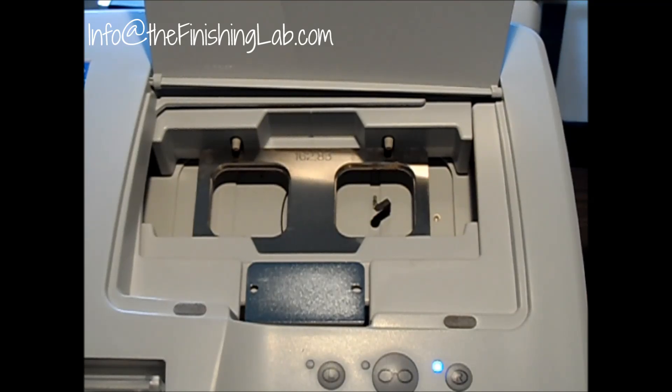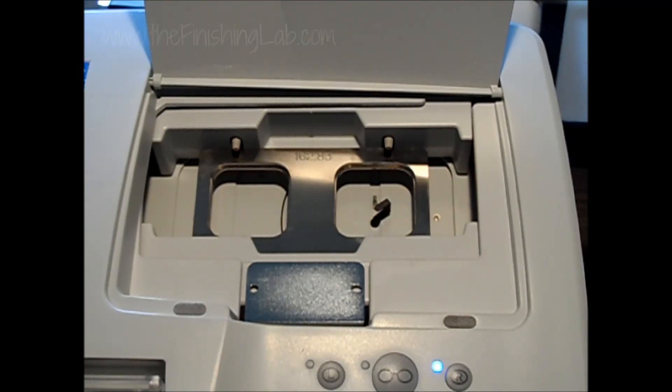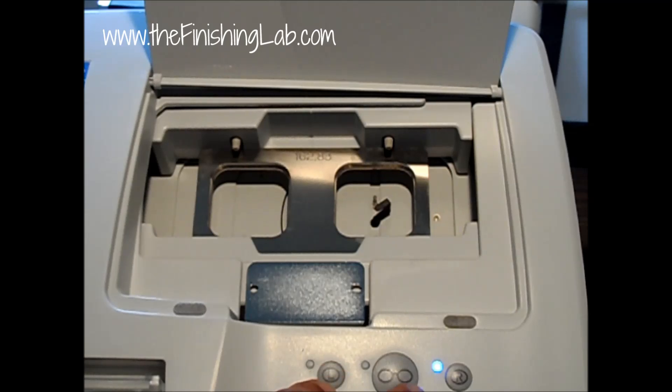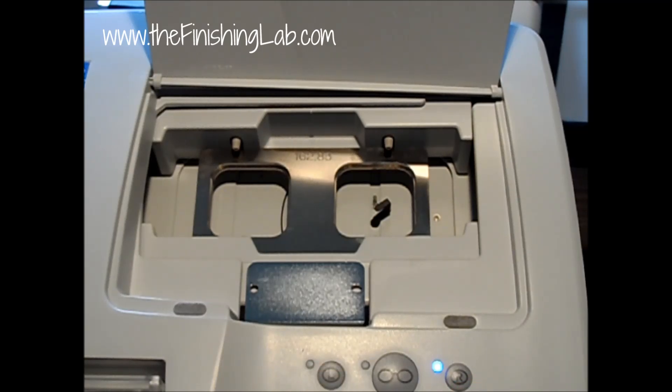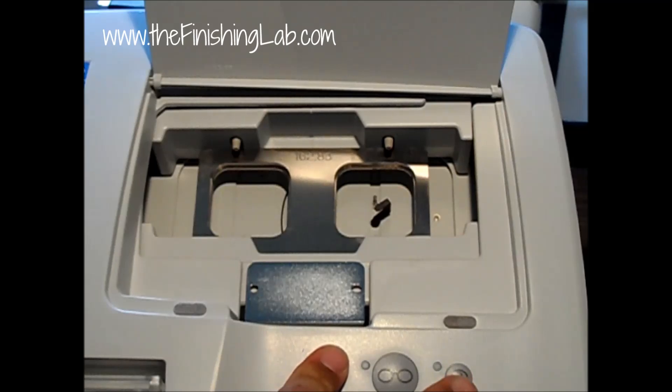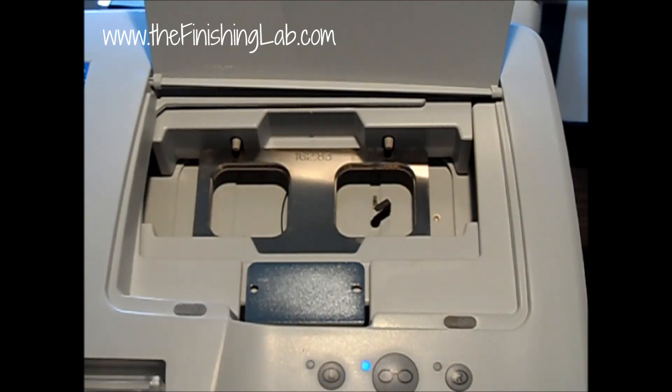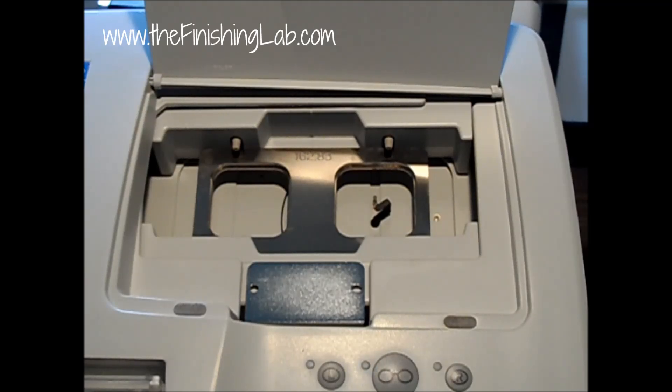Now this is the important part on the calibration. You have to hit the L button and hold it. While you're holding the L button within five seconds you have to hit the R button, then let them both go. L, R, let them both go and your center light is going to flash. This is indicating that it is ready for calibration.